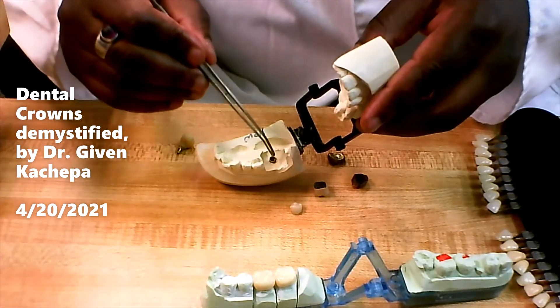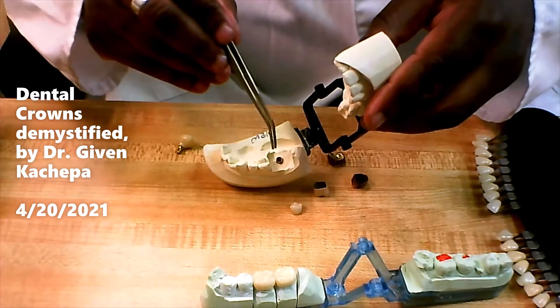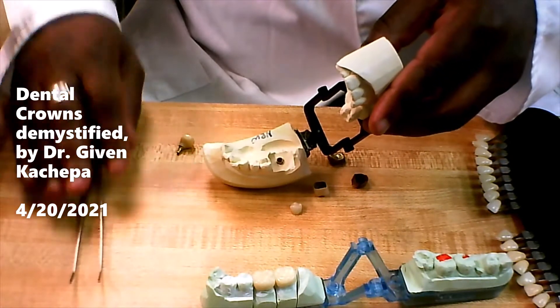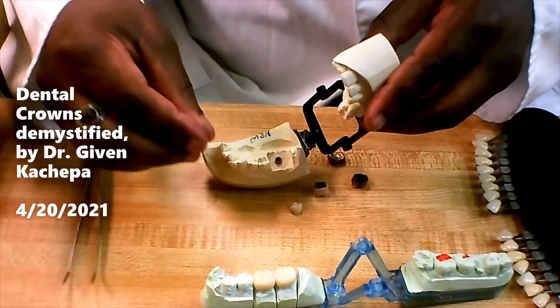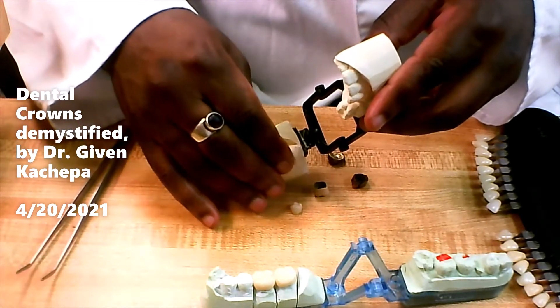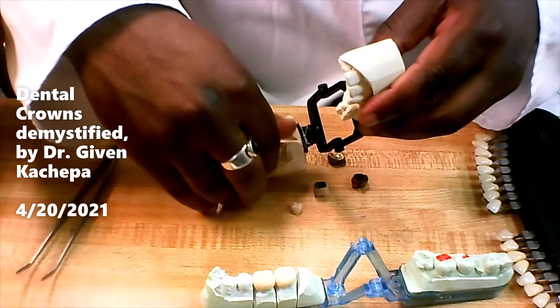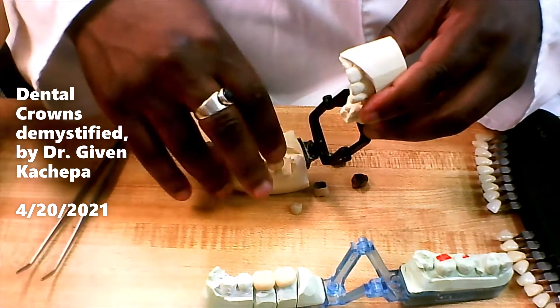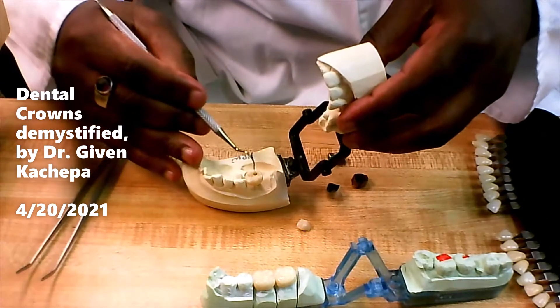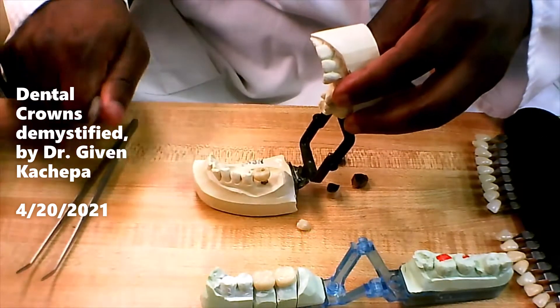We place the implant in the patient's mouth, take an impression, and send it to the lab. The lab makes a model, sends it back, and makes the crown. We get the crown back and put it in like that. There's a little screw that goes inside to tighten it up and make it strong, and then we close that up with some material.